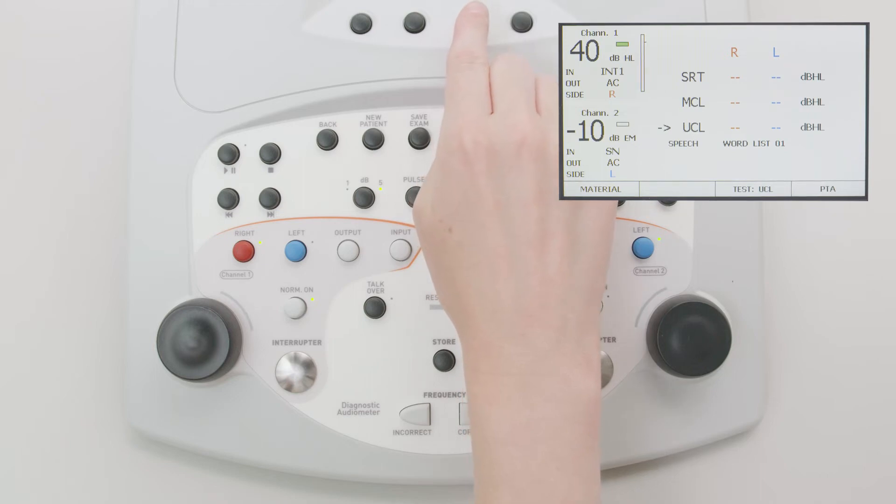A masking signal can be used to avoid the possibility of cross-hearing induced measurement errors. The masking signal is generated through the contralateral channel of the audiometer. Select the speech noise, the white noise, or a signal incorporated into the audio track of the selected speech material.